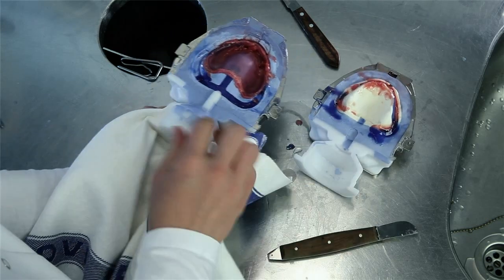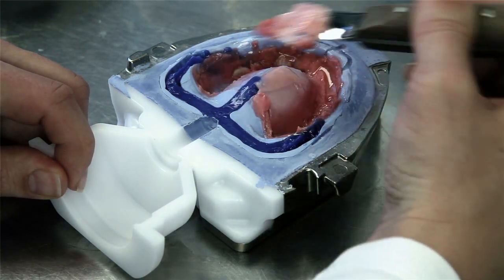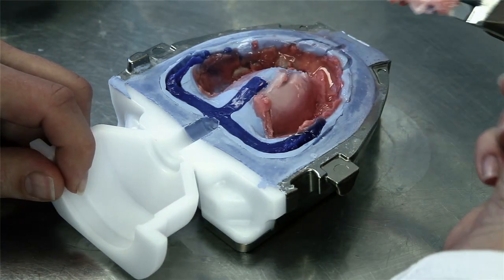In this way, the wax is soft when the two flask halves are opened. Rough excess can be easily and generously removed with a plaster knife.